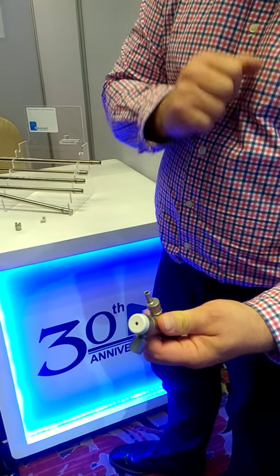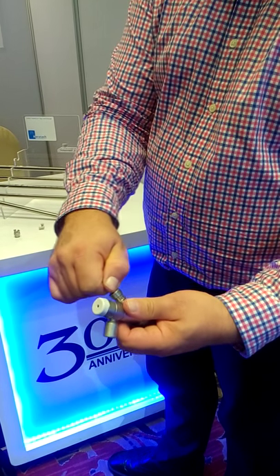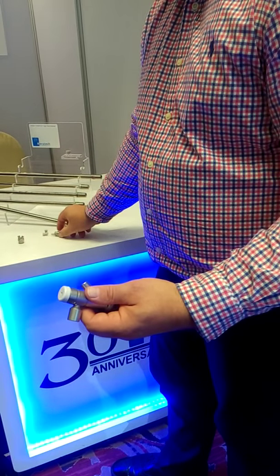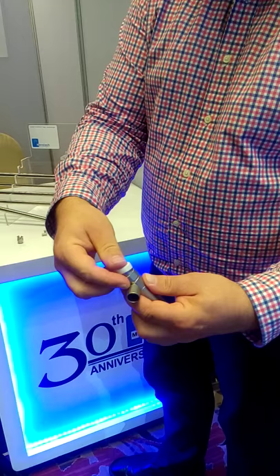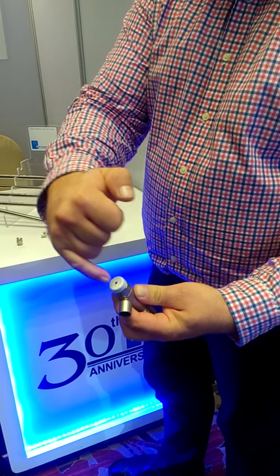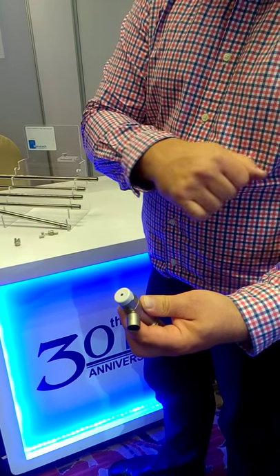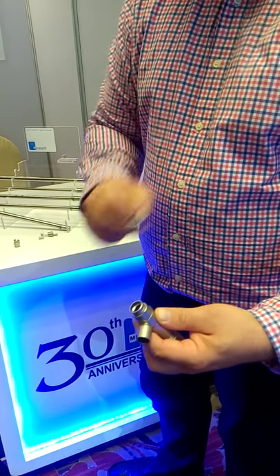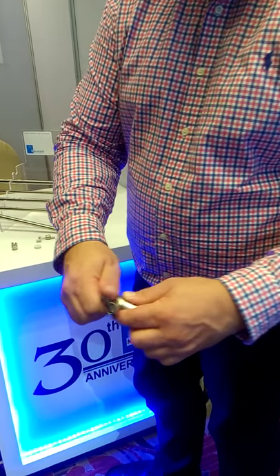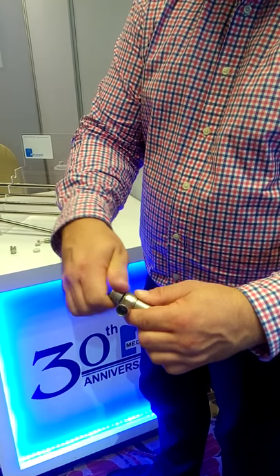We also have an injection port which you can use to put in a syringe, and also for jet ventilation you can connect right here. These two ports are easily interchangeable. From the back part, you can insert the optics — a light source and also video source — or you could actually put through here a flexible bronchoscope.